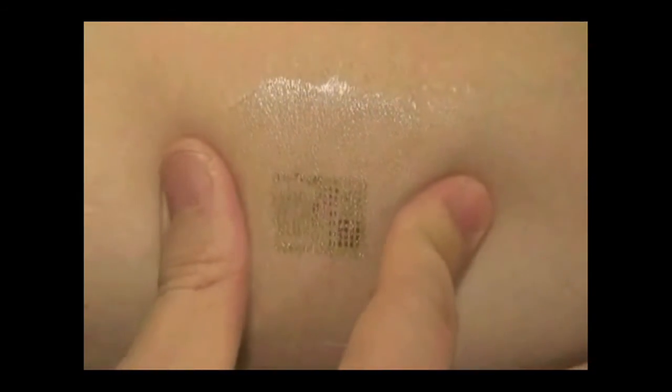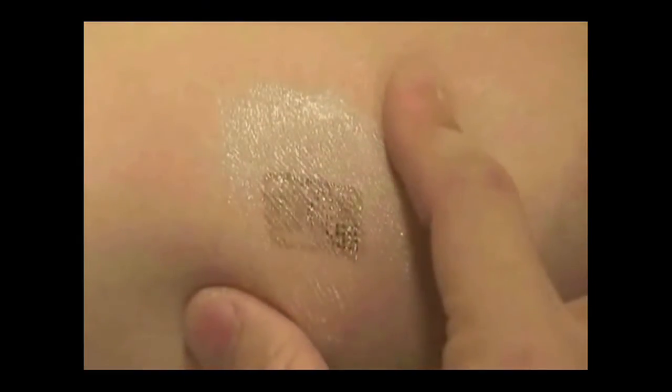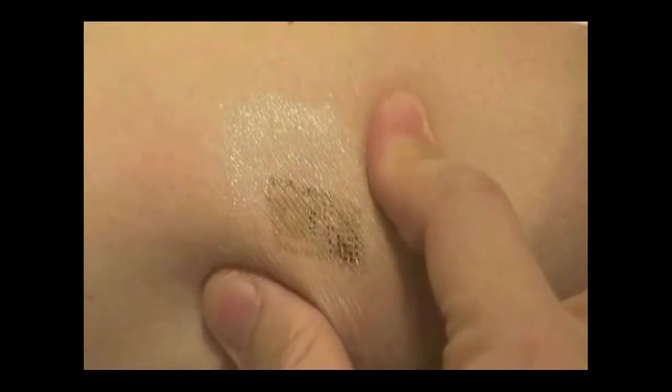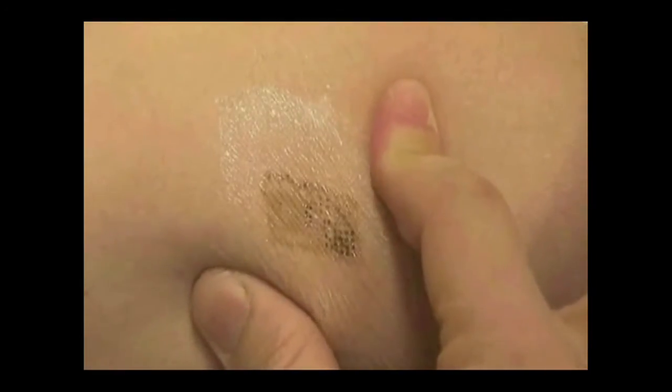The electronics can be subject to all kinds of deformation. For example, when you compress your skin, the electronics can survive this kind of compression while still functioning.